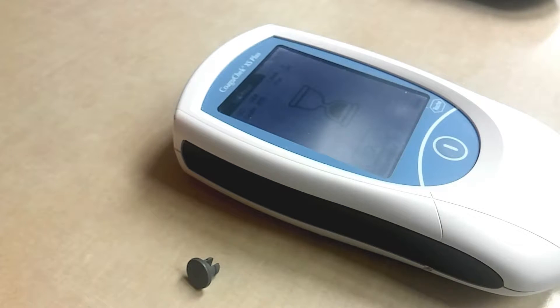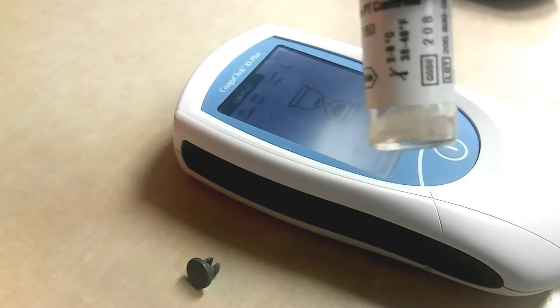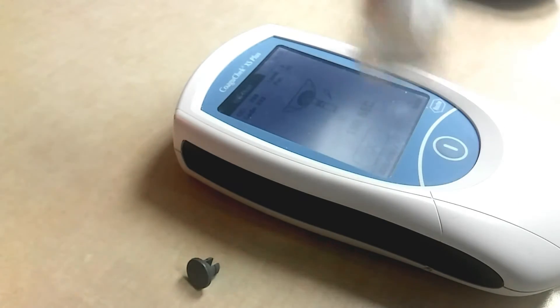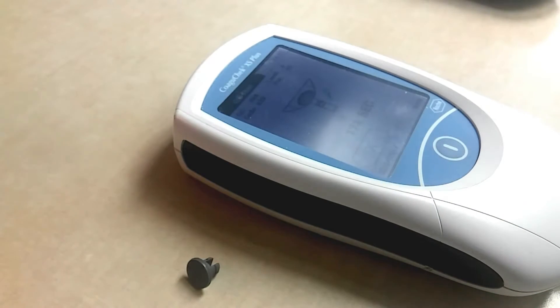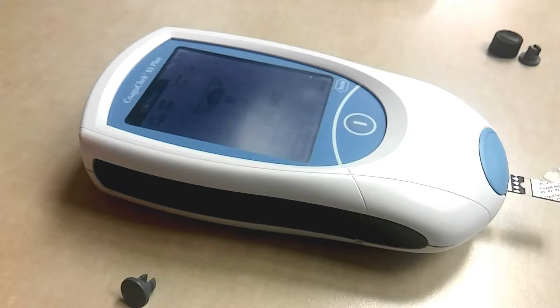It's supposed to be done within a little over a minute from when you make it up, so you don't want to wait too long. I added it in — you can see that pellet at the bottom begins to dissolve. It counts down from 180 seconds, and once it's mixed up well, we will add it on the test strip.